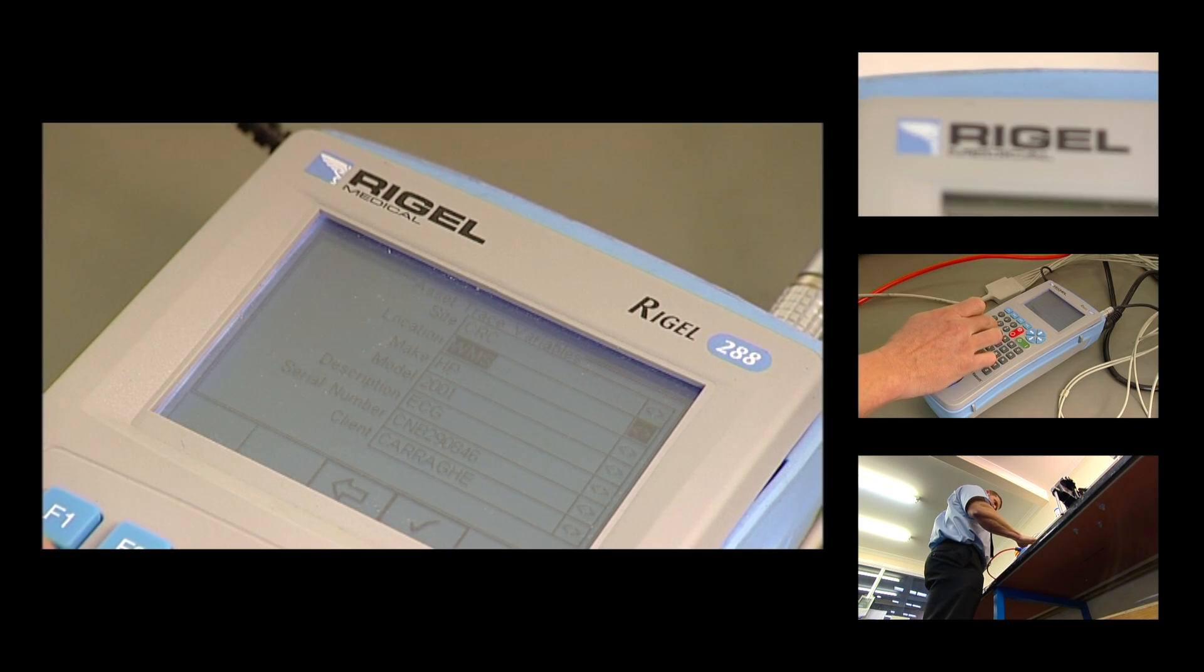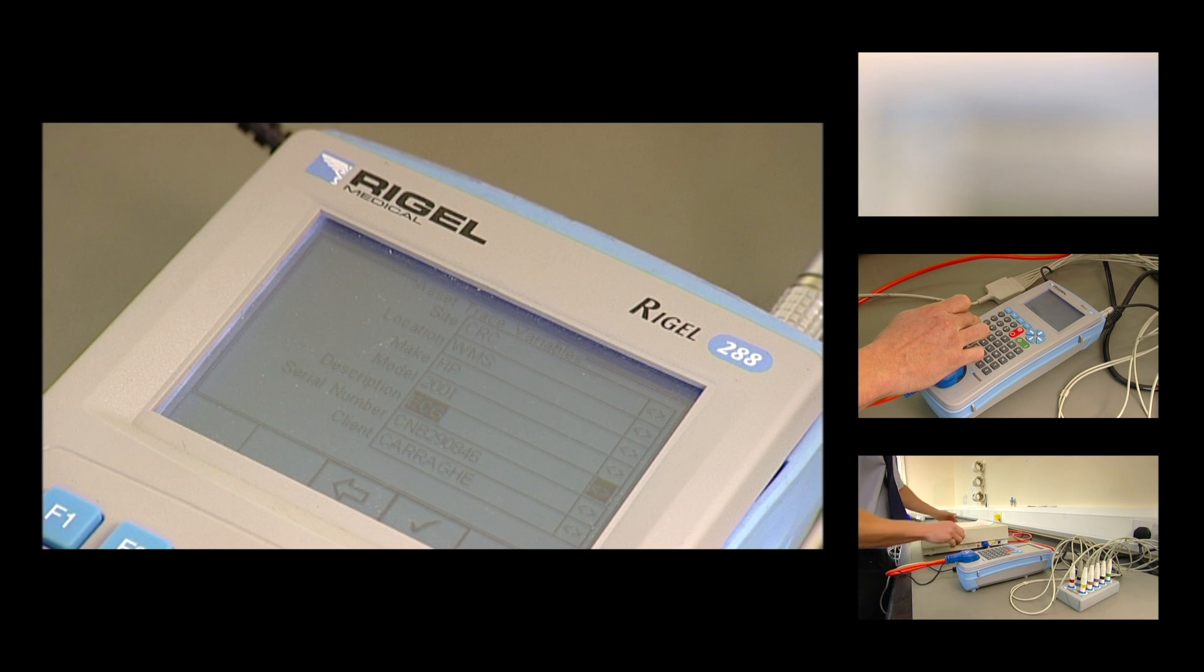The Rigel 288 is the most compact electrical safety analyser on the market.